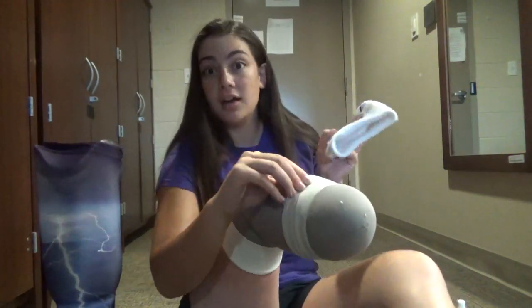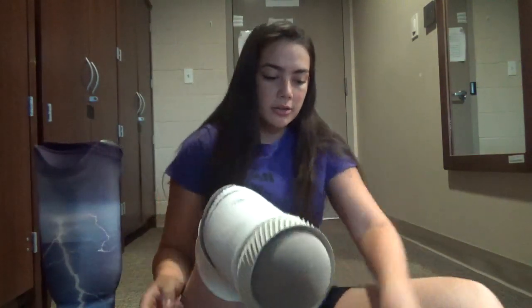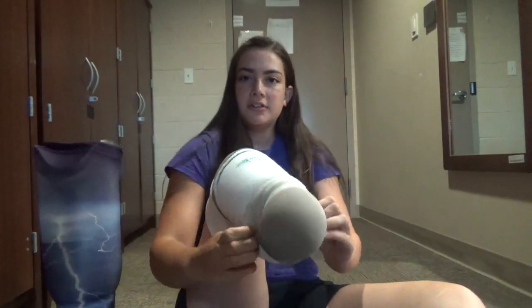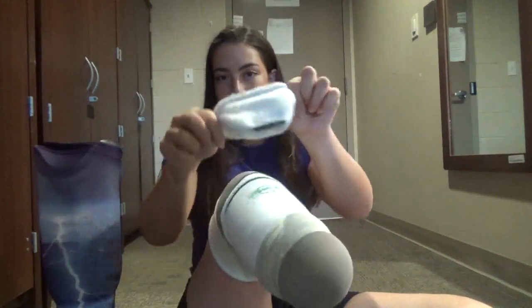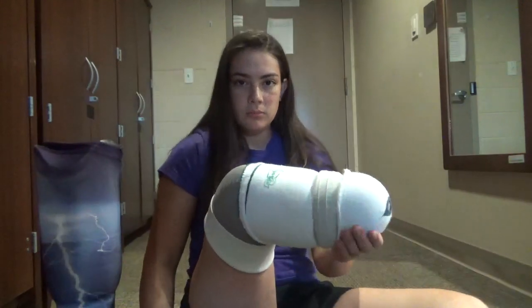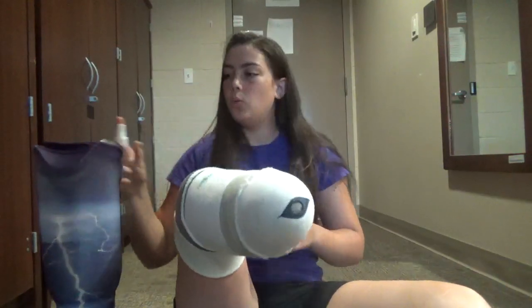What you do — mine, I actually cut off the bottom because I have the seal and liner, so you can't cover the seal because that's what keeps your leg on. You slip it on your leg, flip the seal up, tug it under. So that's five, plus three makes eight. And you fold it back over so you still have access to the seal. These actually came as one full sock but I cut them apart for my seal. Now I have essentially a full sock with my seal still exposed. Spray it again with the water-alcohol mix.